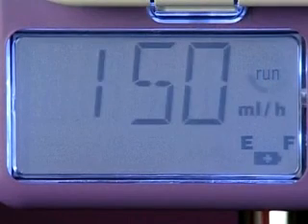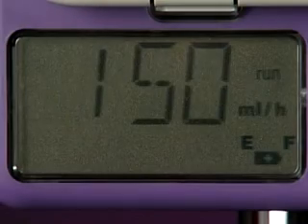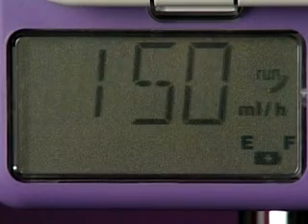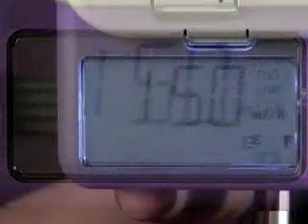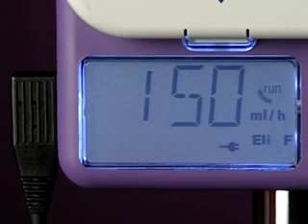The battery symbol will begin to flash when there's 1 hour of battery life remaining. In addition, the pump will beep every 3 seconds. As soon as you can, plug the pump into the mains to continue to run the pump and to recharge the battery at the same time. Recharging will take approximately 6 hours.